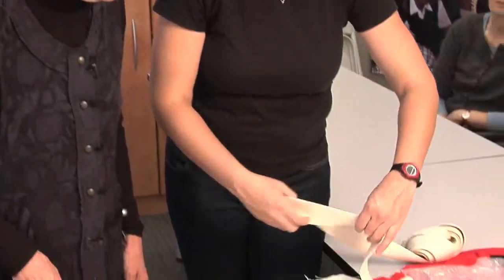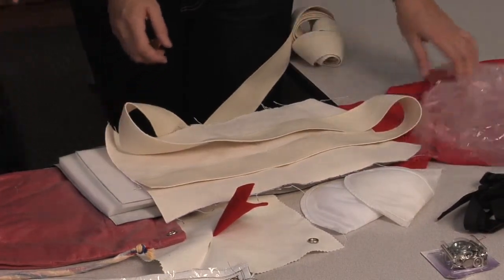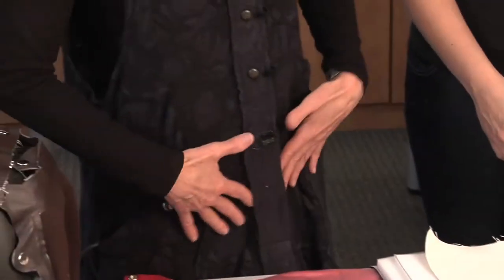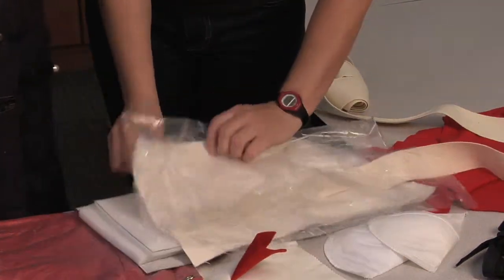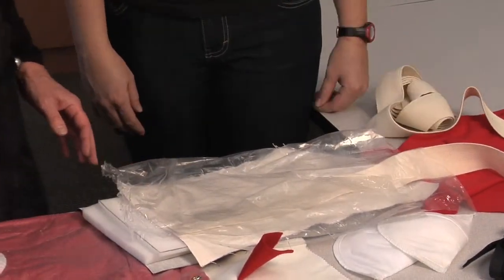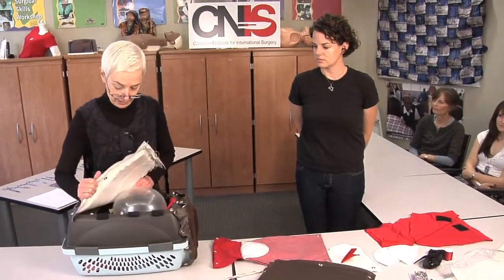We have two lines of elastic that we place about an inch apart, and they represent the muscles — sometimes called the straps. If you've got that six-pack thing going on, those are those muscles. Then we place this over top of everything, sew all the layers together around the edge, and put snaps. So this is the finished product, and it snaps onto the C-section practice box right here.